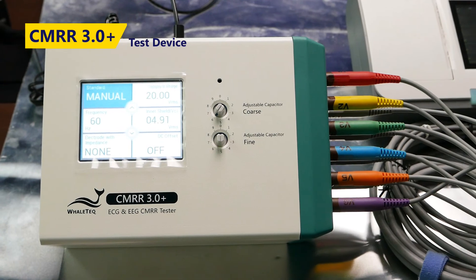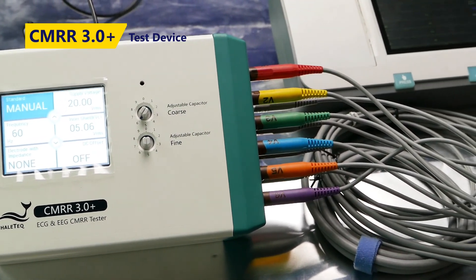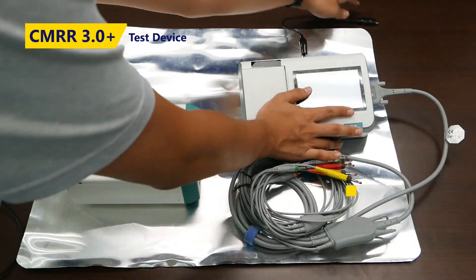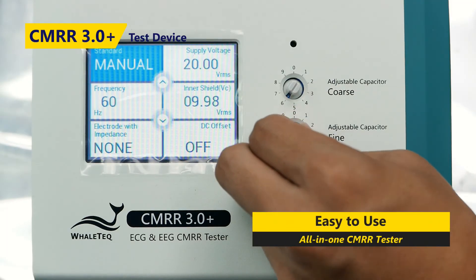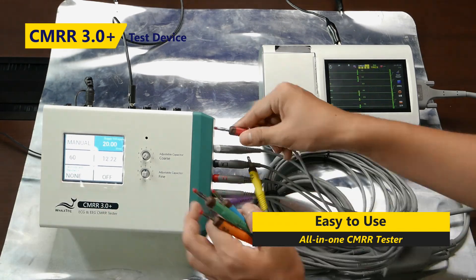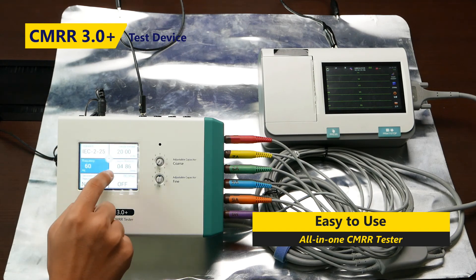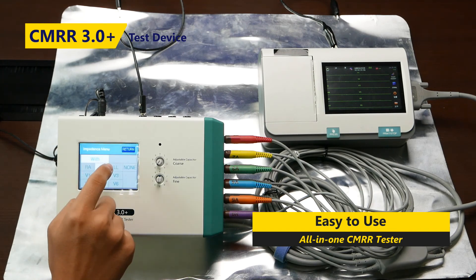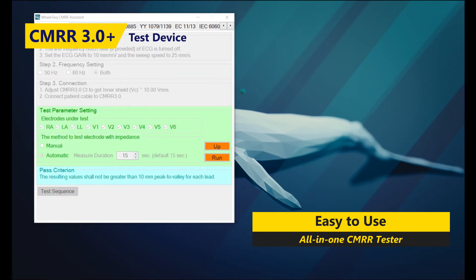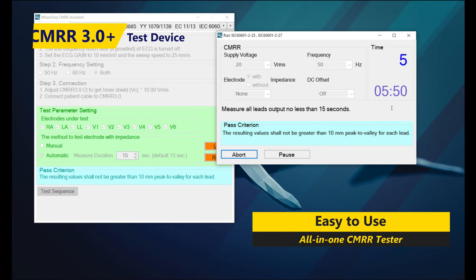For testing, all you need is a CMRR 3.0 Plus, a common ground, and the device you'd like to test. Attach the ground, adjust the capacitance, connect your device, and you're ready to test. CMRR 3.0 Plus offers two ways to run tests: you can use the touchscreen to choose the testing standards and run each test clause, or you can use the PC interface and assistant software to automate entire standard testing in minutes.